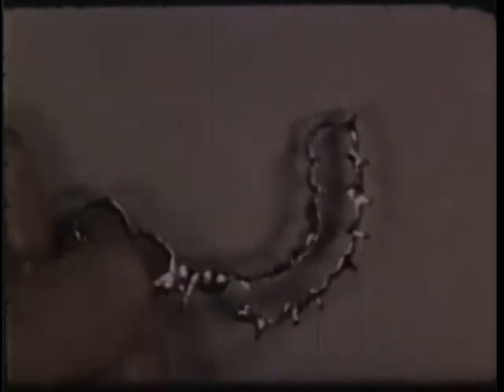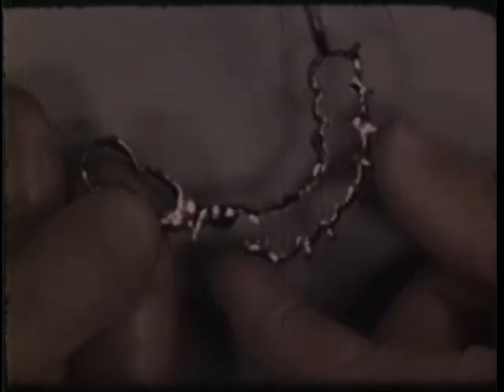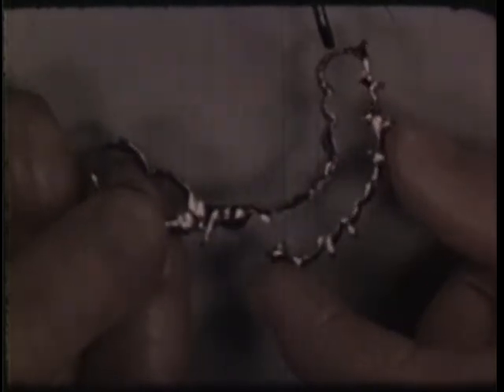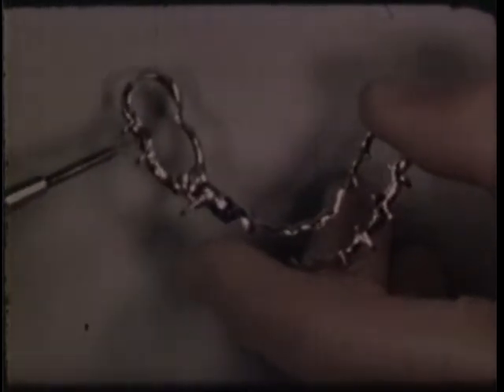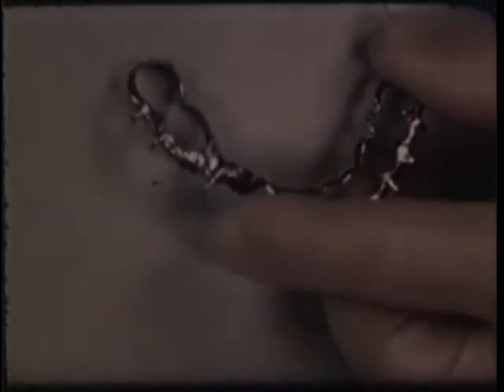The splint for the lower jaw, now ready for insertion, provides firm reduction of the fracture while the bone graft is consolidating. Known as the cast wing-type screw-lock sectional splint, the device has as its chief features wing hinges on each end, a screw lock to provide retention, and additional screws to furnish interproximal retention. Either 0-80 or 3-48 screws may be used in the screw lock. Mechanical retention is added in the interproximal undercuts with 0-80 screws.